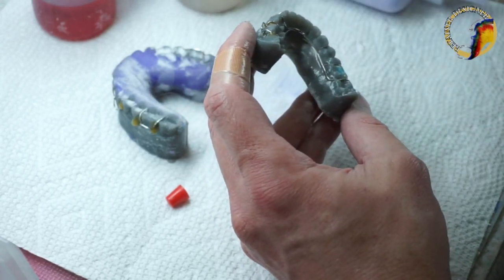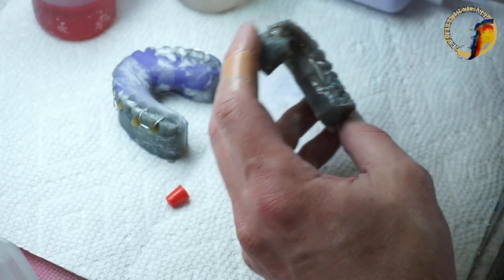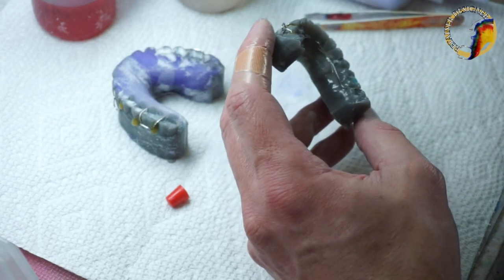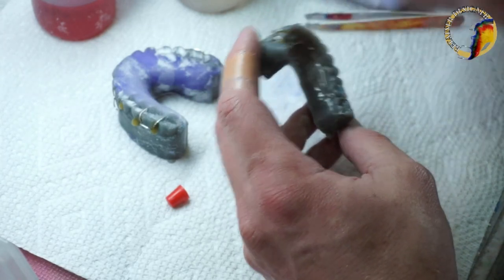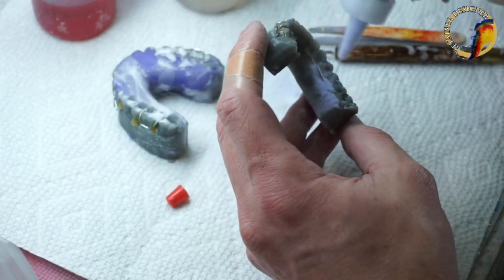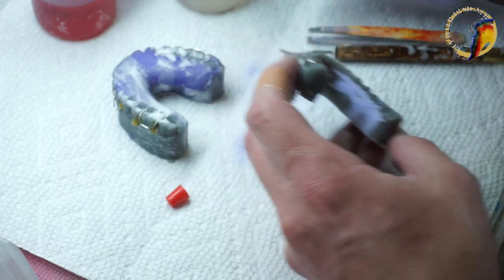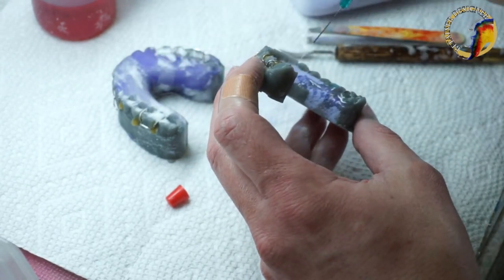Let me get the name for the lower. Most of you don't have to worry about names, but here in Texas it's state law — you've got to have some sort of identification mark in the retainer. I just noticed my upper was trying to slump, so I put a little powder on there to freeze it.